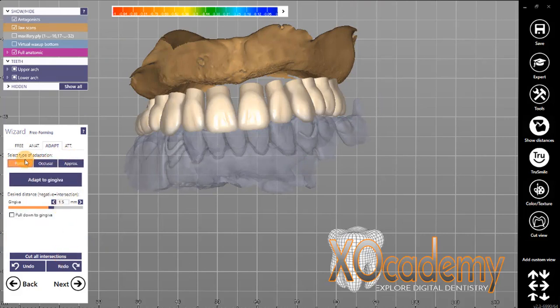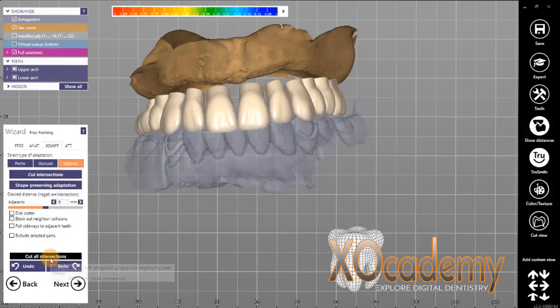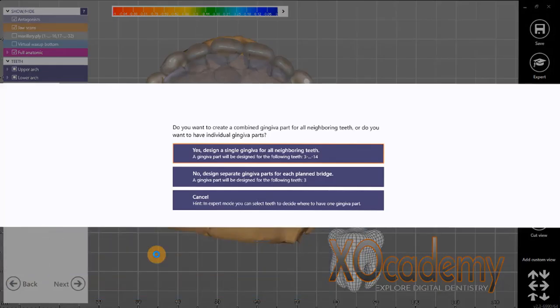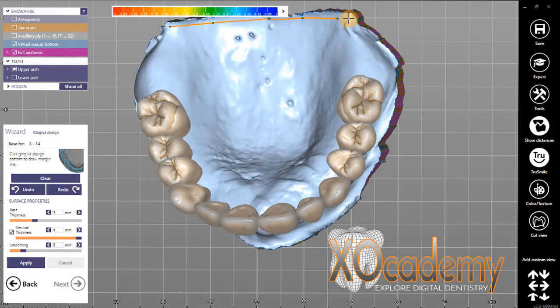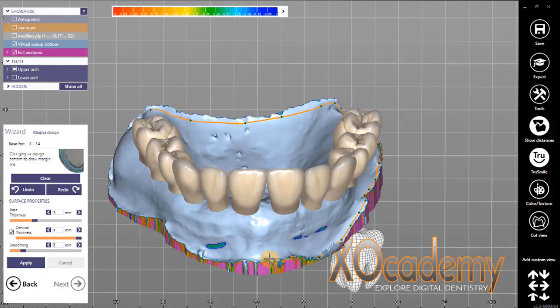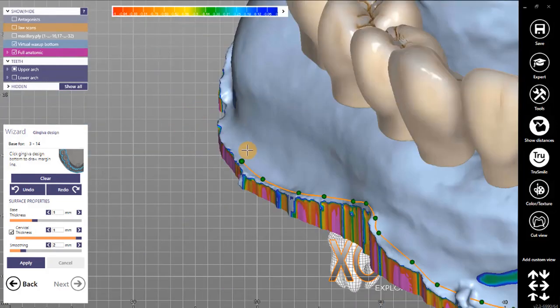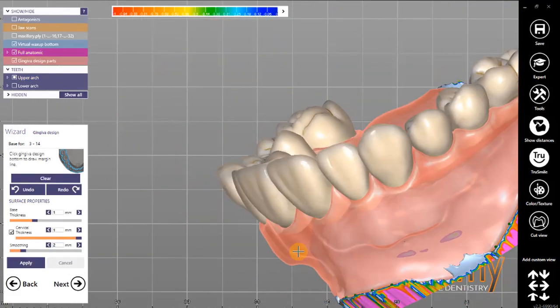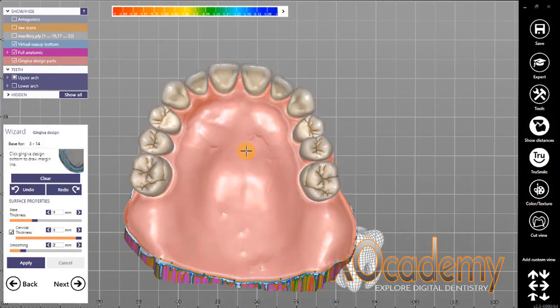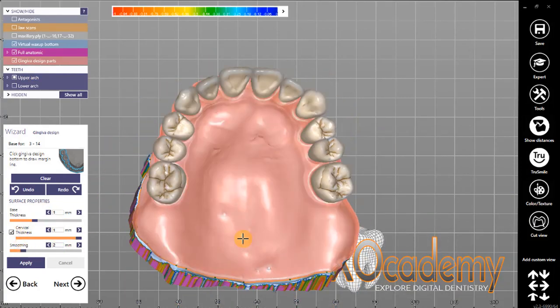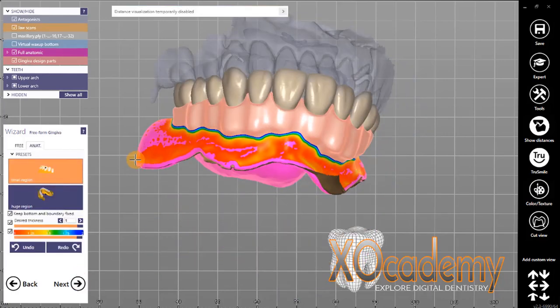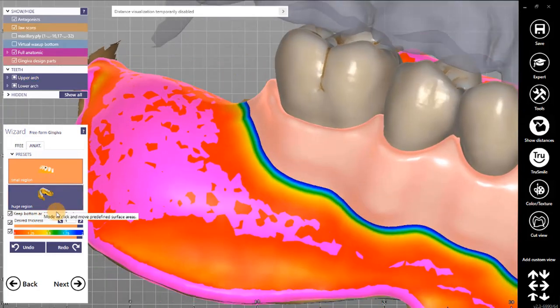You can also paint and exclude areas, and ExoCAD has a nice feature to automatically adapt the occlusion to have a certain contact, a certain intersection area or depth, as well as neighboring teeth contacts. When we make the gums — the virtual gingiva — the denture base is really just one giant section of gingiva. So we take our jaw scan from earlier, make our denture base surface, and outline the extent of our denture base. ExoCAD does all of the work for us in making a denture base that completely envelops the denture teeth or the pontics.